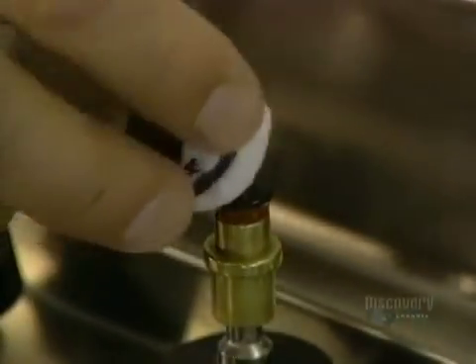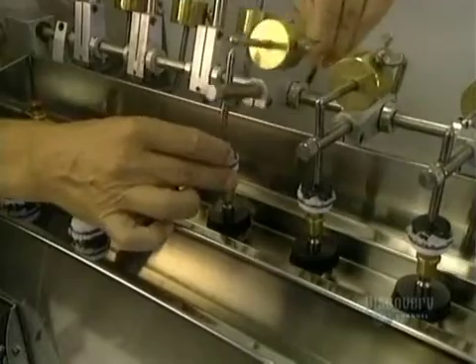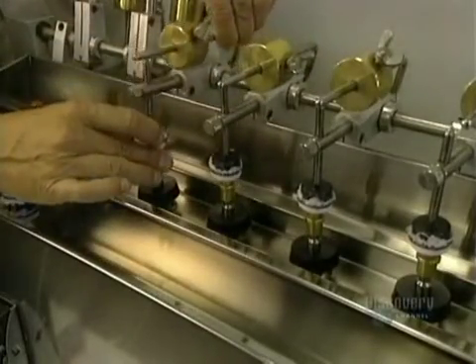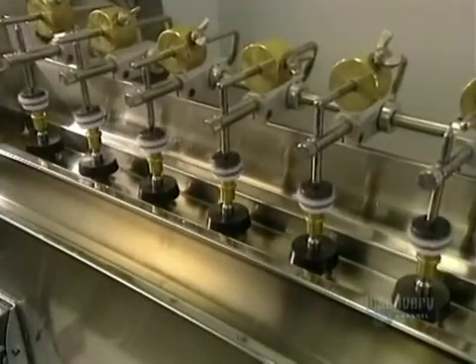They now polish the outer surface of the lens. This polishing, done at high speed, calls for an abrasive paste, some oil, and a small polyester cotton ball. This apparatus polishes several lenses at the same time — a step that takes only 60 seconds. With everything computerized, quality is incomparable.